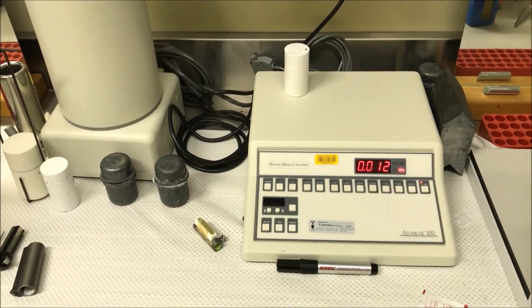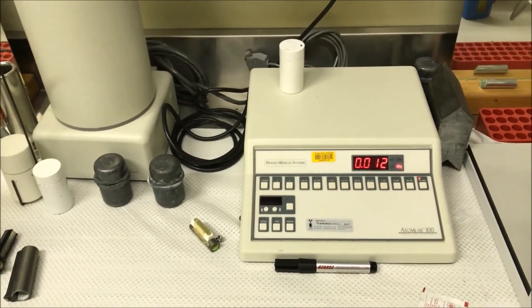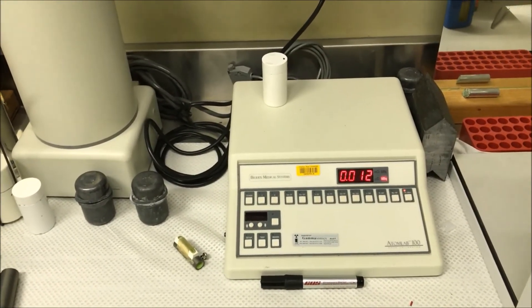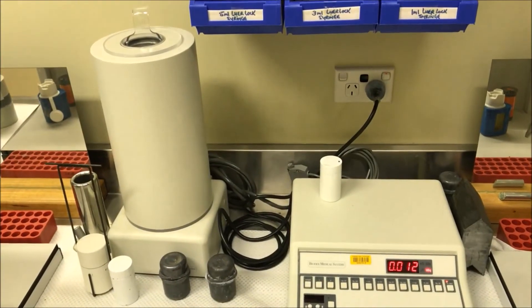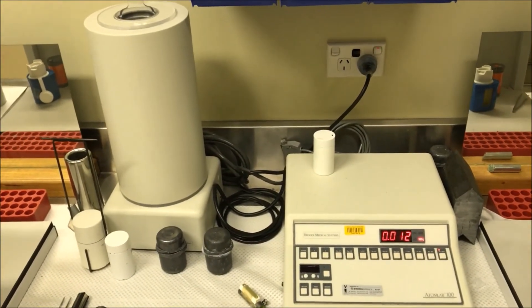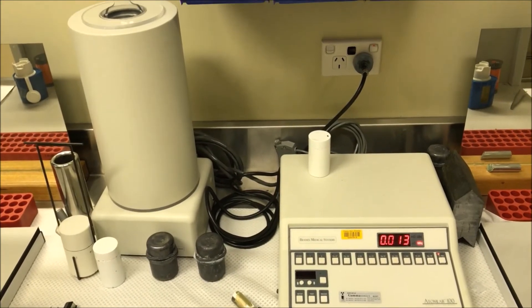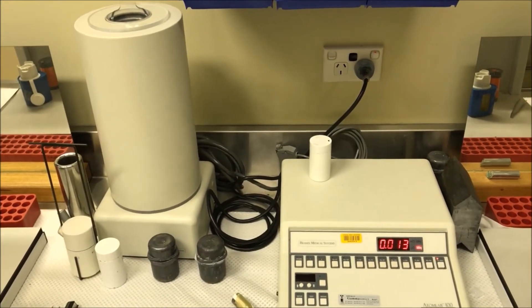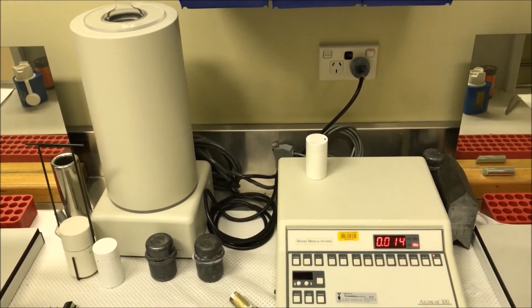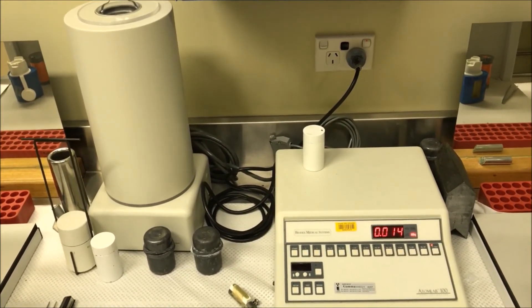Depending on what the radiopharmaceutical or radionuclide is, the decay rate will be different. We can use the data we're recording to calculate the actual half-life, and by using the half-life we can hopefully identify which radiopharmaceuticals or radionuclides are involved. So that's experiment three.